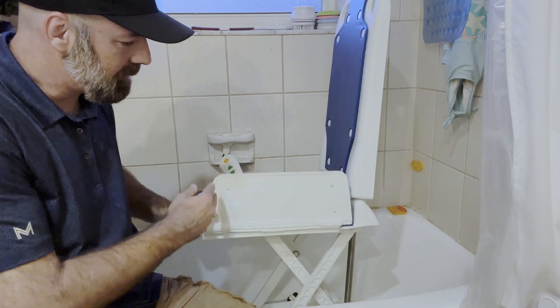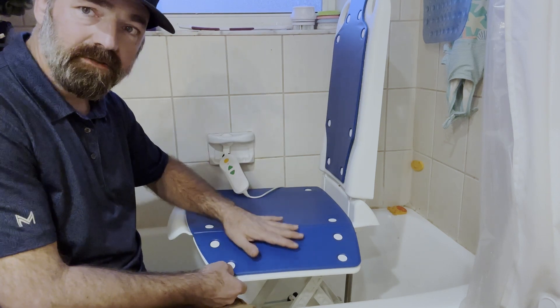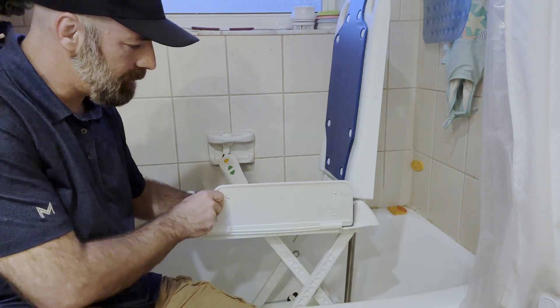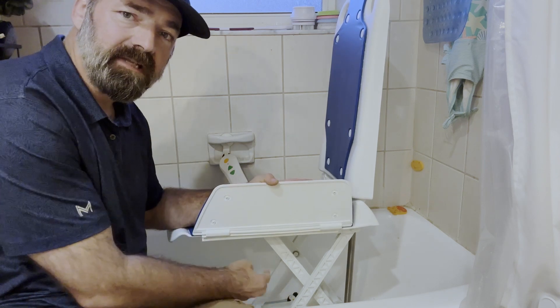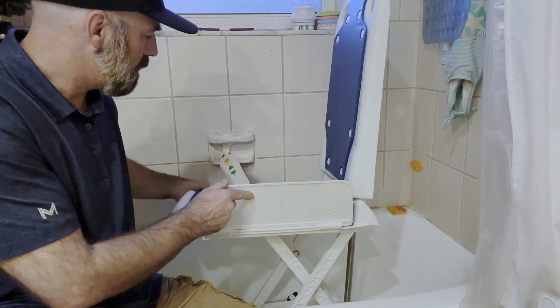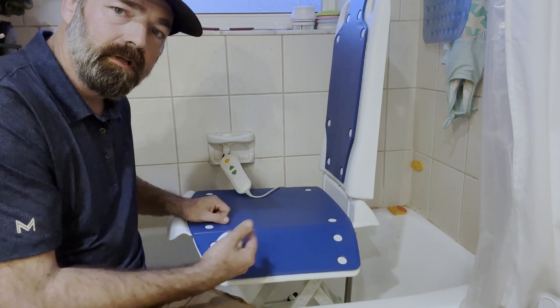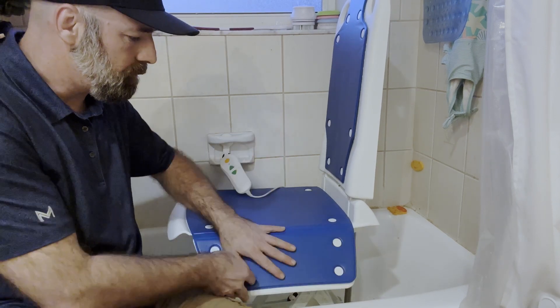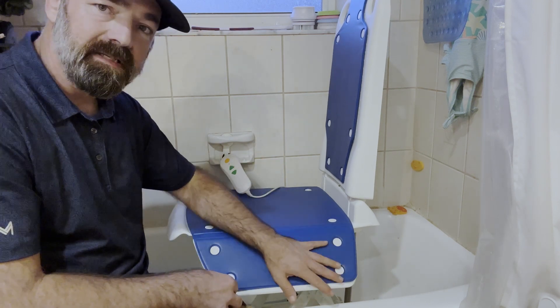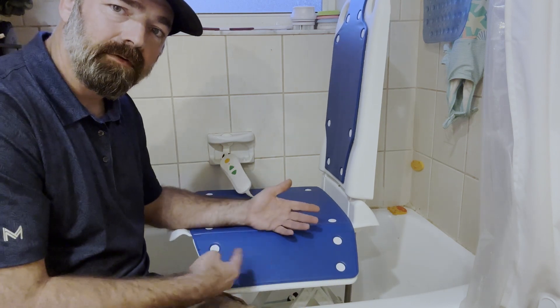It has these little wings on the side. As it goes down, watch these wings because they will lift up — they give you extra padding and protection from the side of the tub and help cuddle and embrace you in the tub. Then as the chair rises back up, the wings go back down to allow you easy access in and out of the chair.